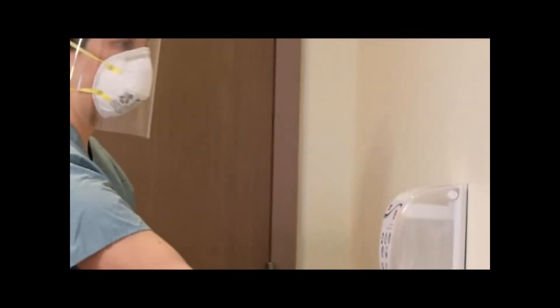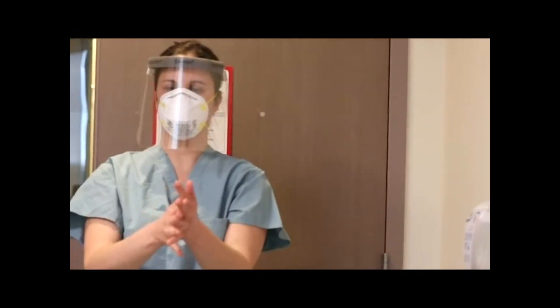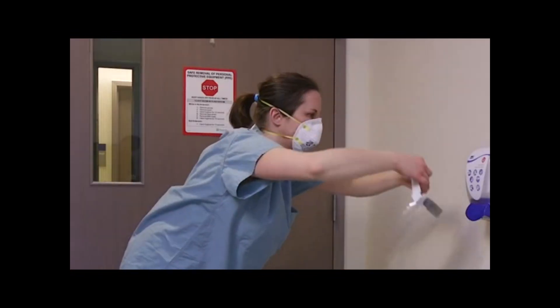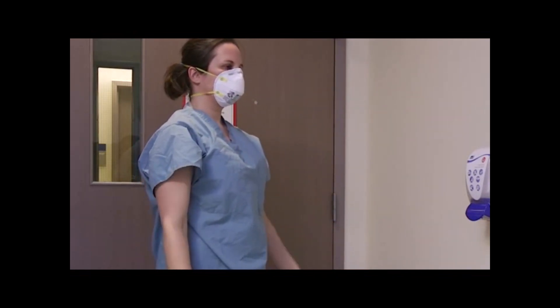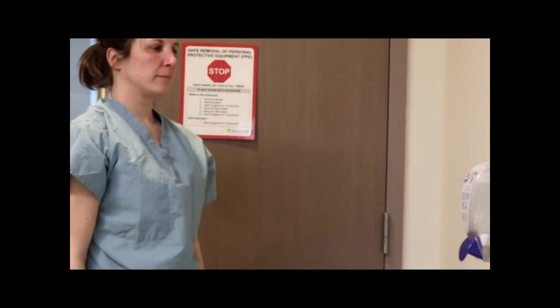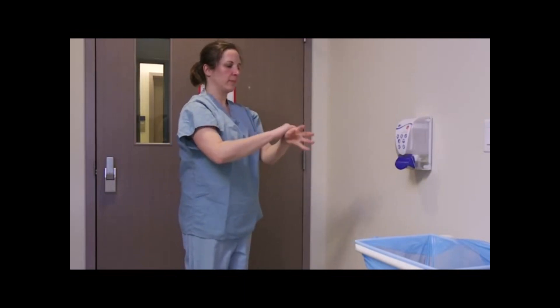Perform hand hygiene for 15 seconds. Remove the face shield by grabbing the strap at the back of your head, slowly pulling it down and away from your face using the sniff position — bend forward, eyes forward, chin out. Dispose of the face shield in the garbage. Remove the N95 mask without touching the exterior, again using the sniff position. Remove the bottom strap first, then the top strap, grasping from the back of the head. Dispose of the N95 respirator in the garbage and perform hand hygiene.